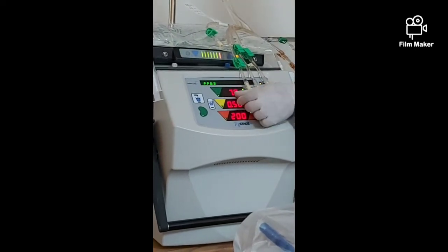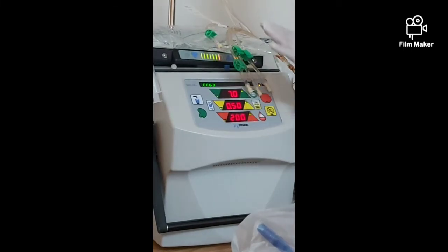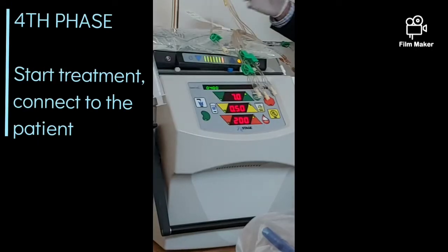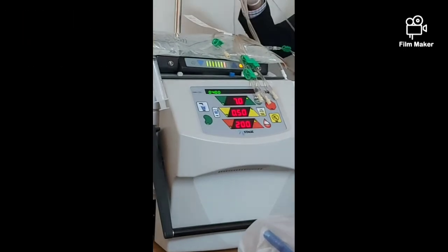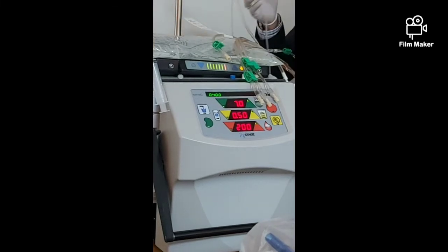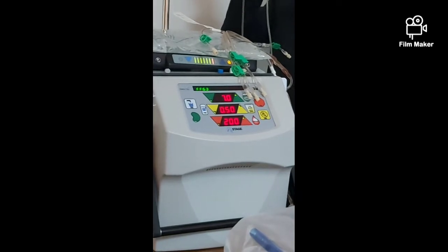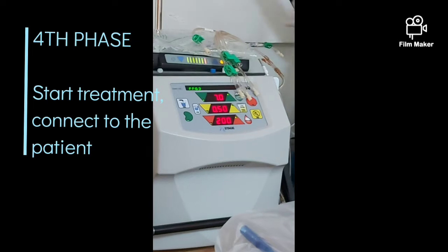The time is already fixed with this setting, so don't worry about it — after this finishes, you can terminate. First, we will talk about how to connect the patient. Before connecting to the patient, there are four connections. The four connections are: venous and arterial — you see the two connections, red and blue — and then yellow and green, and there is a fourth connection.